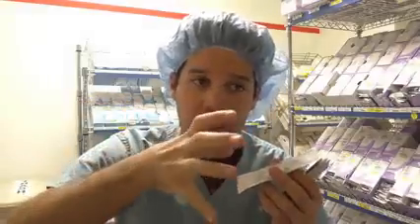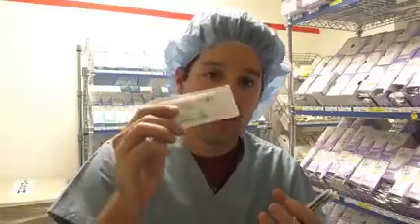A lot of the times people use it for skin closures if they don't want a full primary closure of the skin and completely close the skin off, but they want the incision to still drain a little bit. They'll use interrupted stitches, and interrupted stitches are one single stitch, not like a running stitch. They'll just use interrupted stitches to close up the skin, and what that does is it leaves areas of the incision somewhat open, so the incision can still drain, especially if there's an infection underneath or something like that.